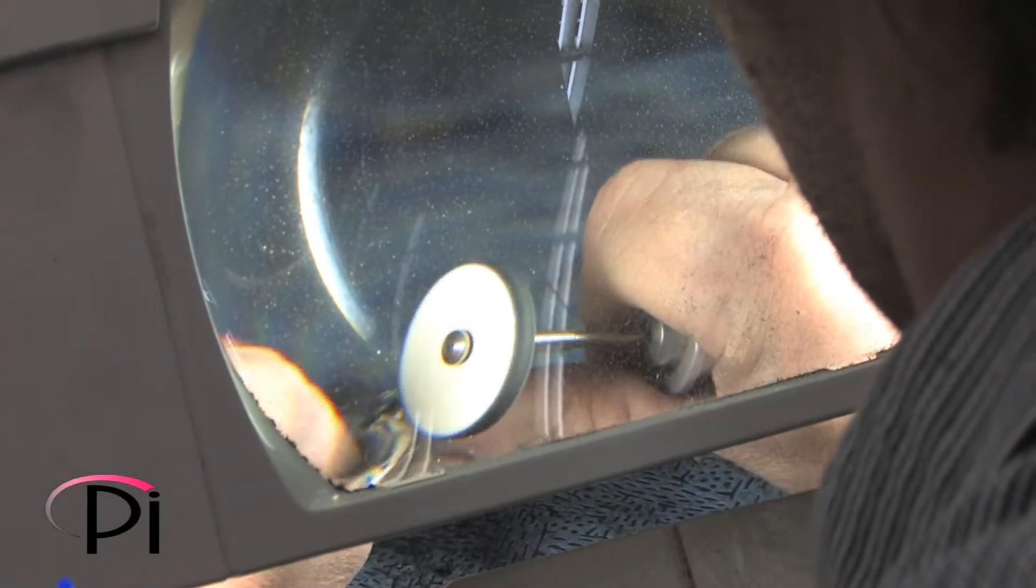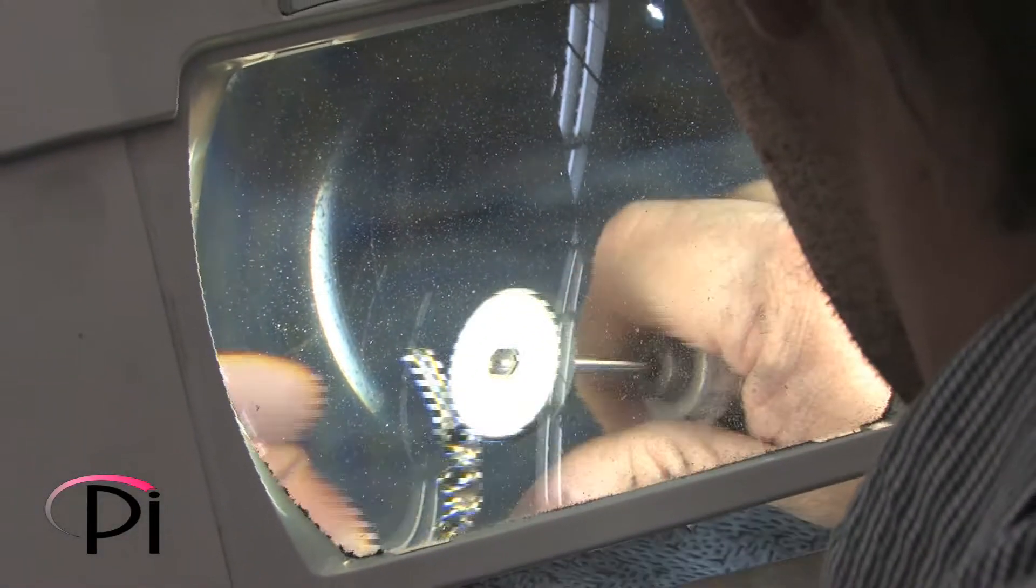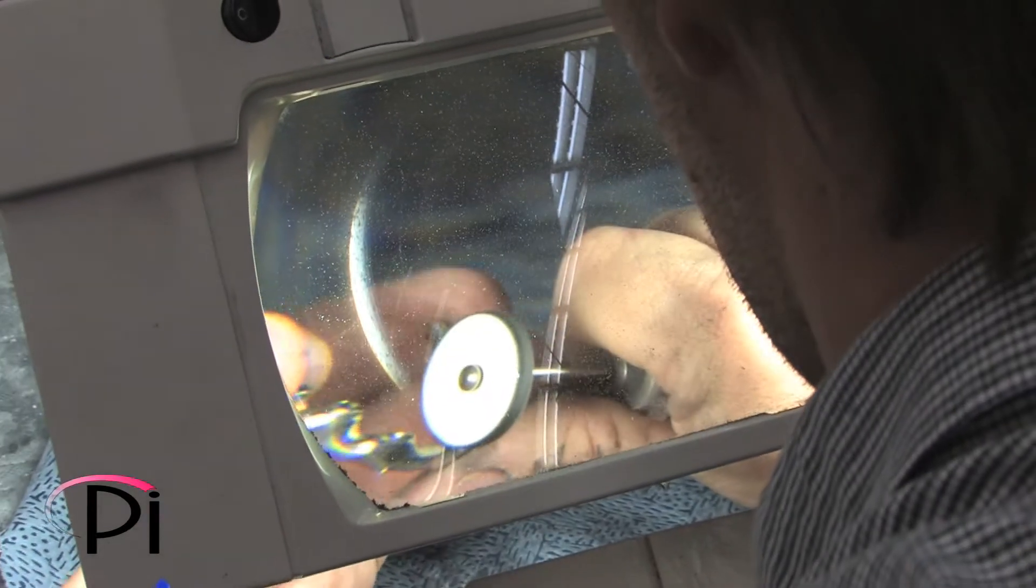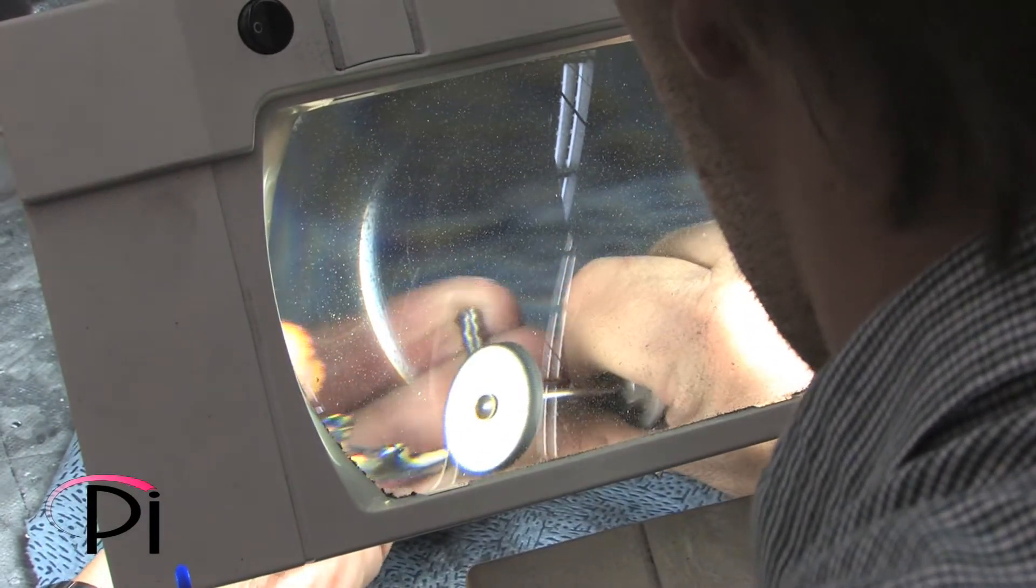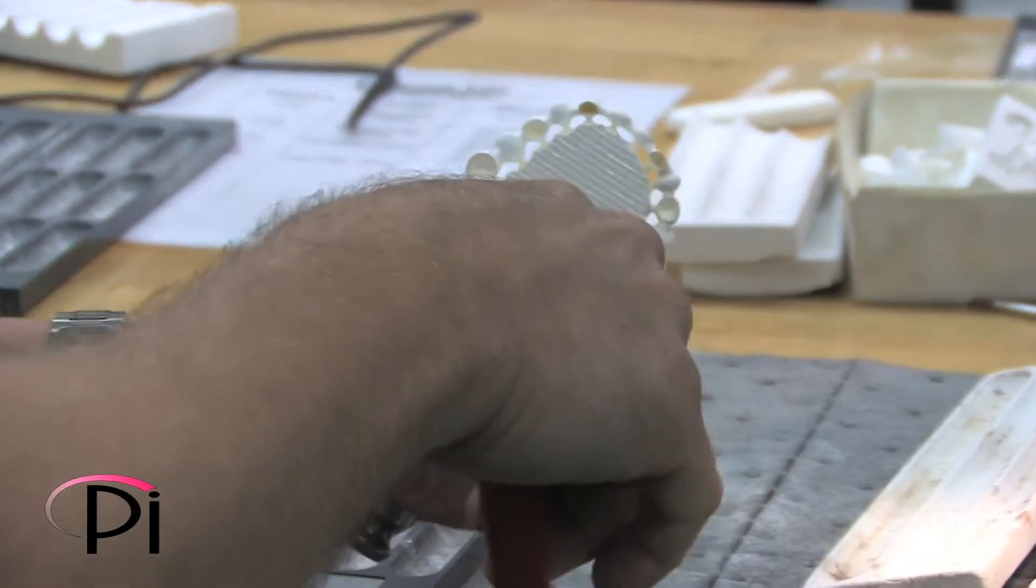The final prosthetic reconstruction for any dental implant treatment can vary in materials, and therefore it is imperative to understand the expectation of durability and aesthetics.